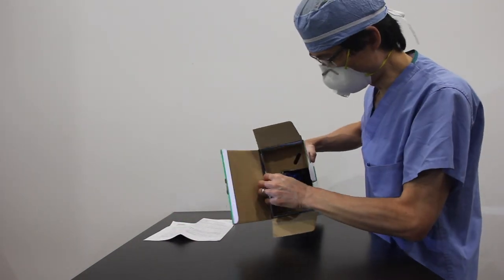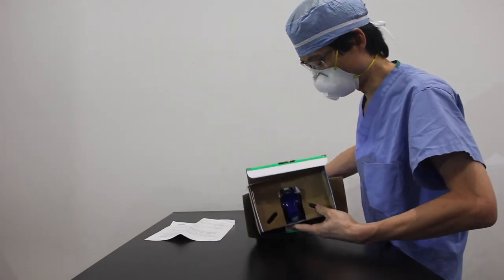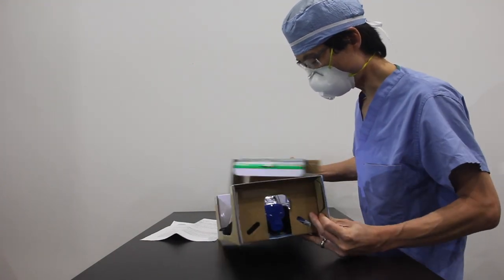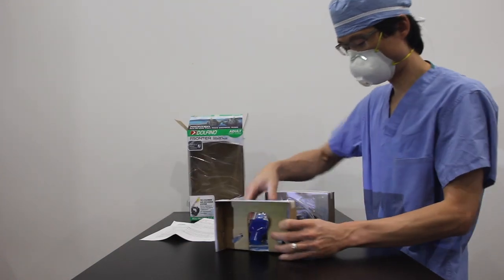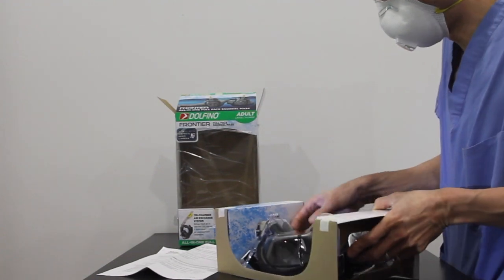Open this thing up here. Take this out. Put the box here on the back. It's kind of nicely packaged. Take the mask out here.